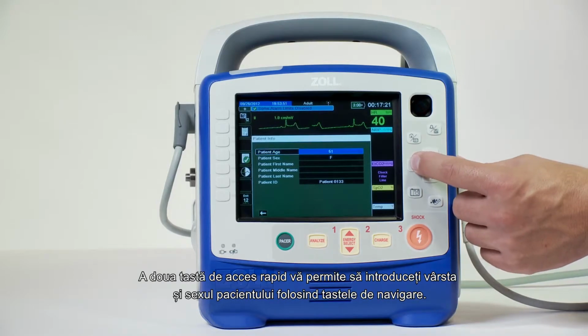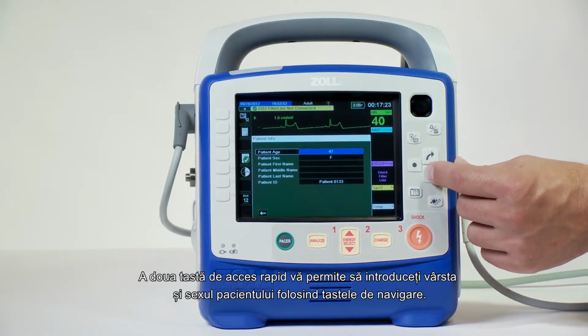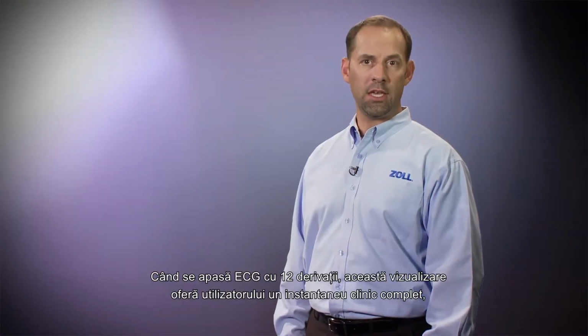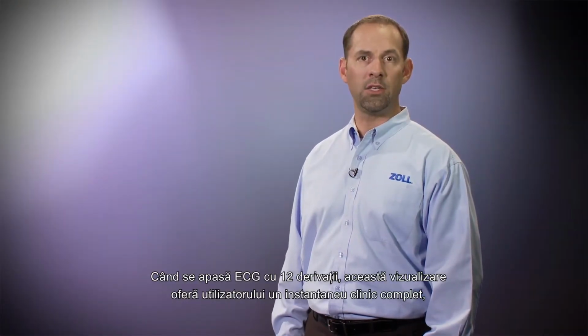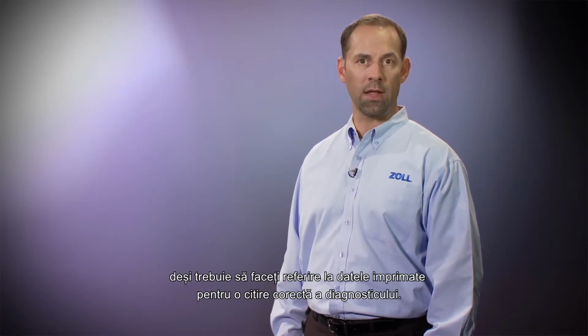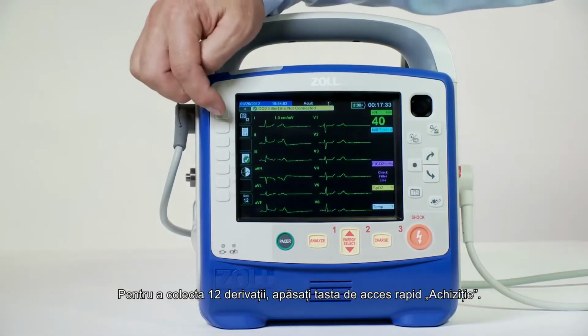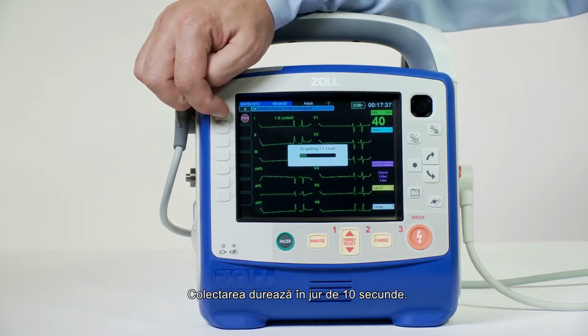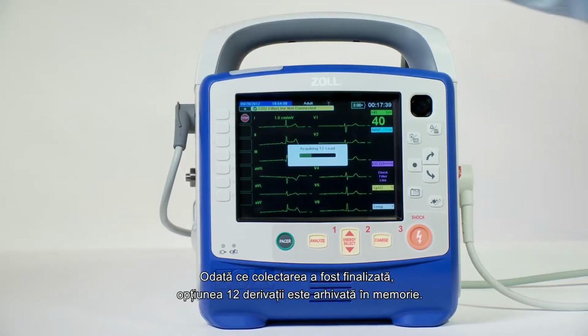The second Quick Access button allows you to enter the patient's age and gender using the navigation keys. When the 12-lead ECG key is pressed, this view provides the user with a complete clinical snapshot, although you must refer to the printout for a true diagnostic quality reading. To acquire a 12-lead, simply press the Acquire button. The acquisition takes about 10 seconds, and once the acquisition is complete, the 12-lead is archived to memory.